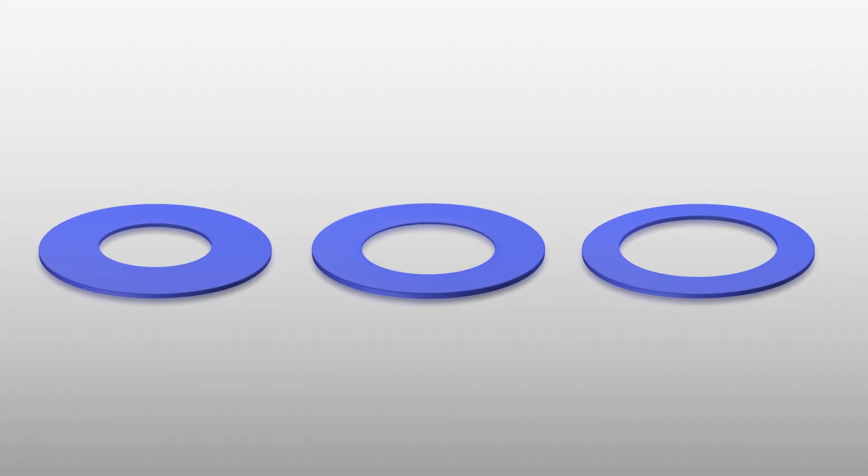Multiple apertures are available to accommodate a variety of body types.